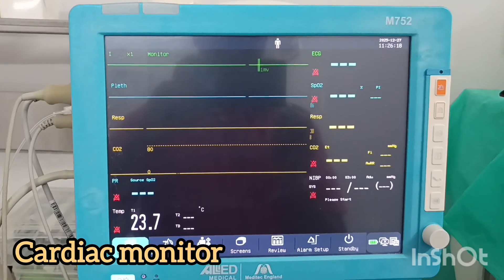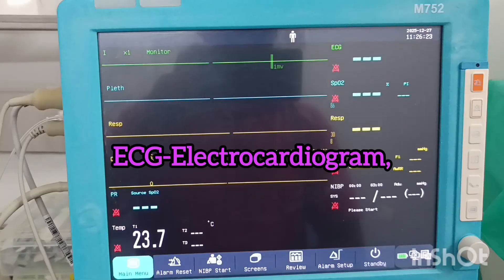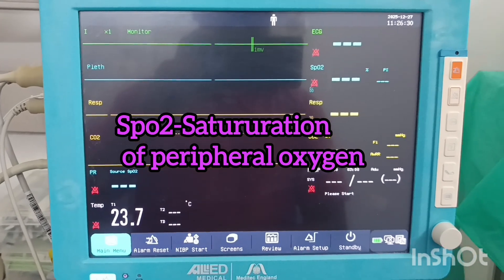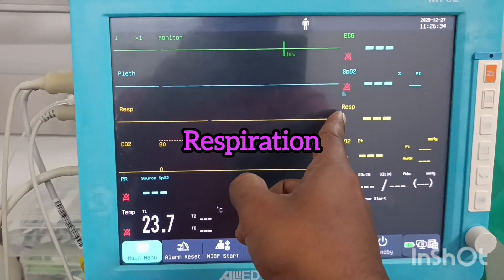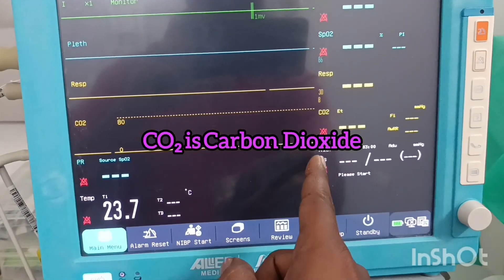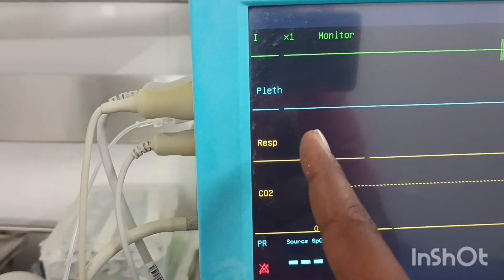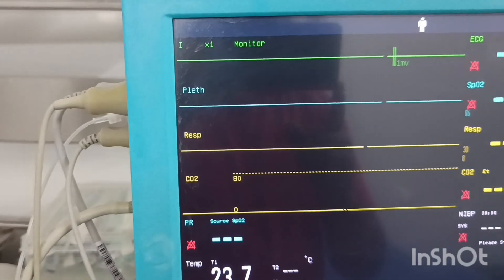In the cardiac monitor, the first thing we see is ECG — ECG stands for electrocardiograph. Next is SPO2, which stands for saturation of peripheral oxygen. Next is respiration, then CO2 for carbon dioxide, and NIBP, which stands for non-invasive blood pressure.